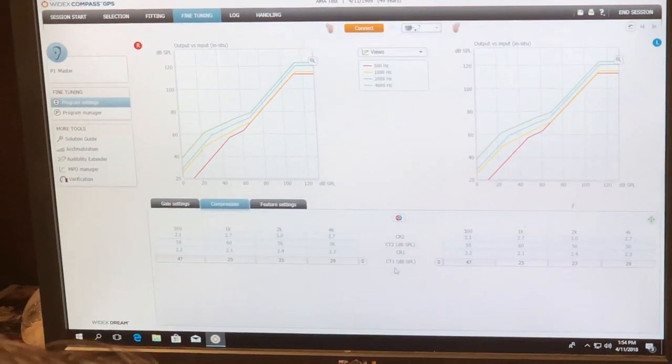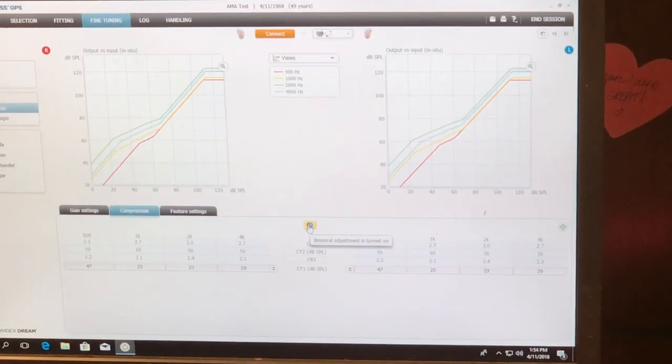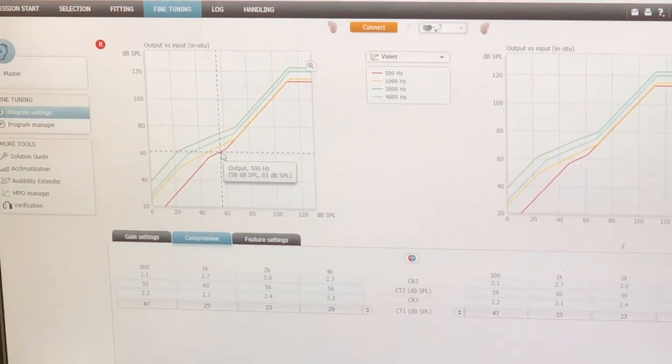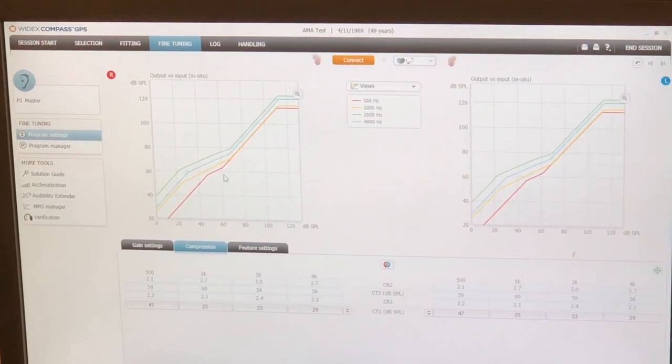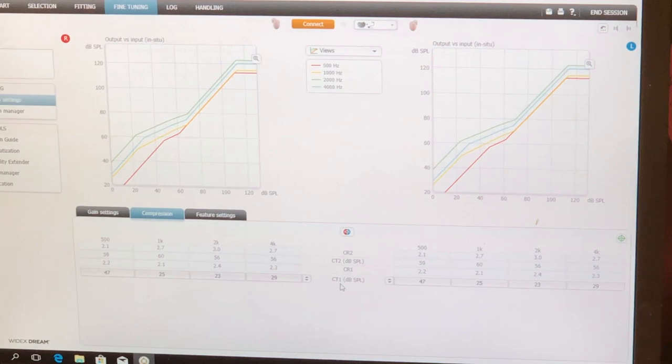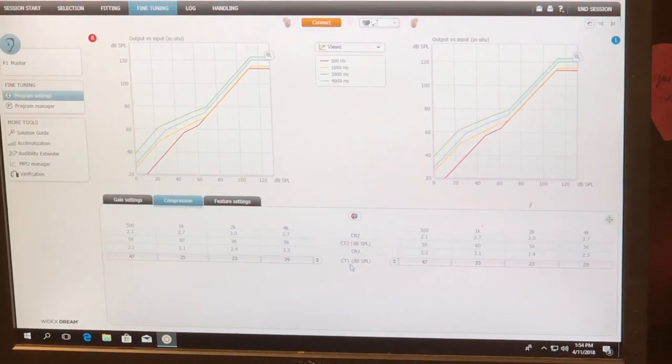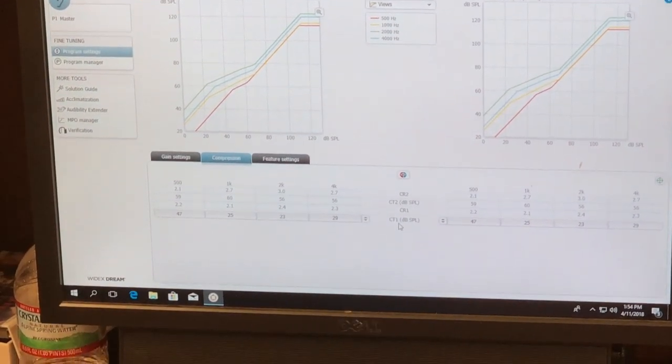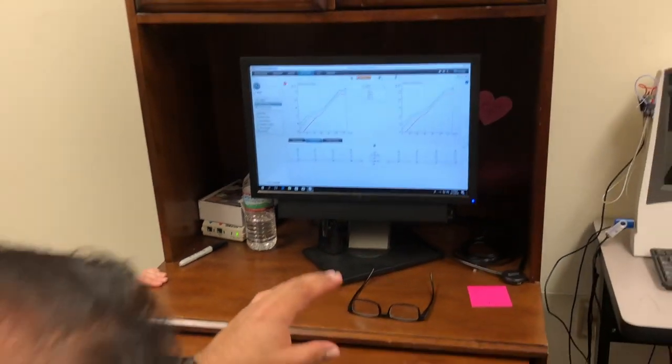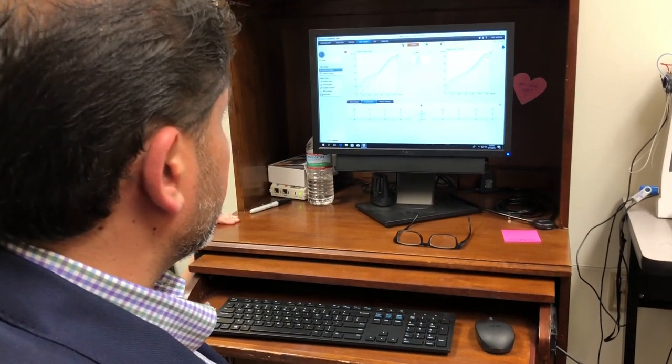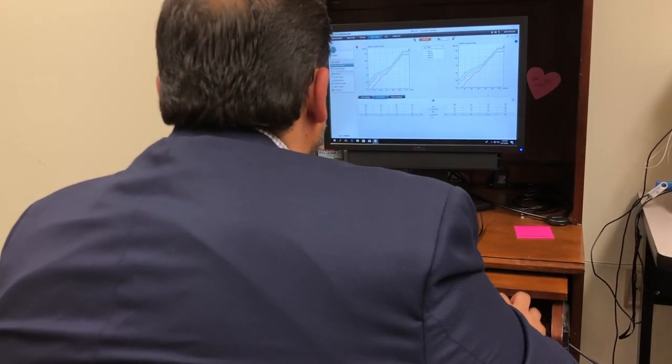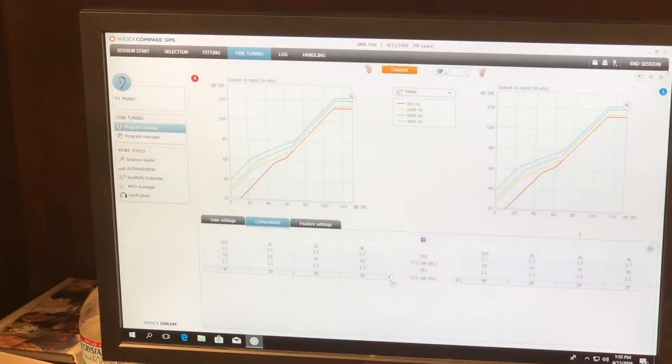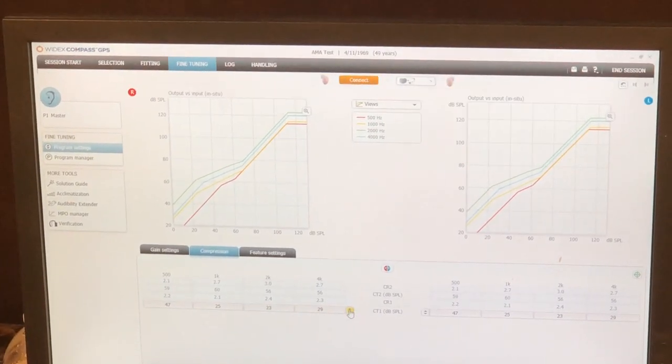But I can't seem to change it. It won't let me. And see, this is what drives me crazy. Binaural adjustment is turned on. Beautiful. It's changing both of them. How do I change that guy? Can I drag it? I can't change it. It won't let me. So the only thing that this is going to let me change is my low frequency knee point. The manufacturer is not letting me do that.